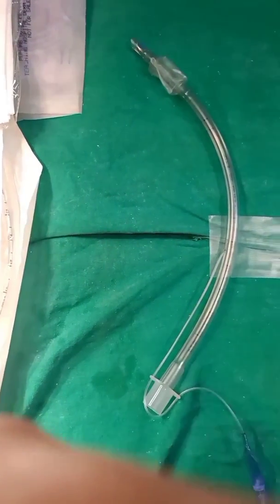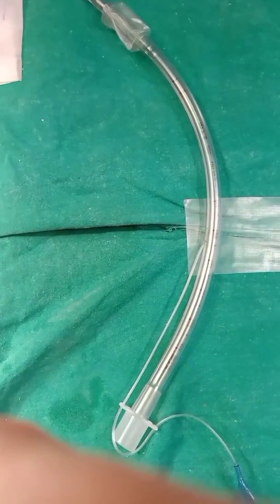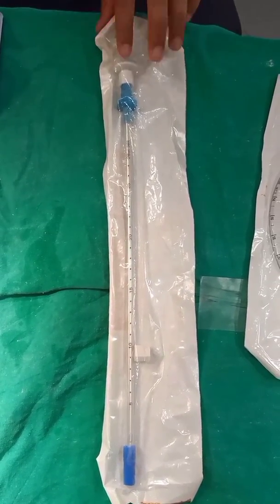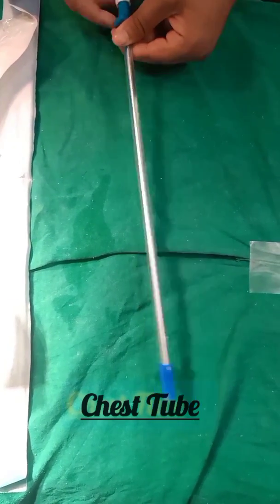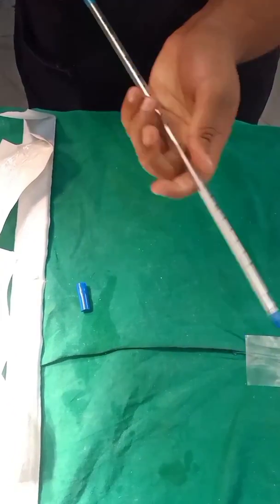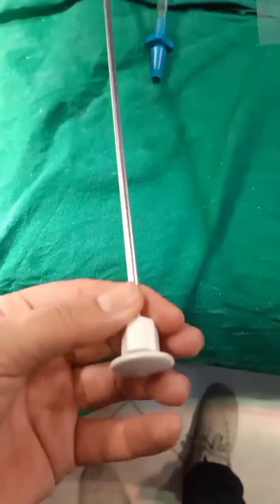It is placed with the help of the laryngoscope. In the close view, you are now seeing the chest tube with a trocar. While opening it, you will see there is a trocar. This is useful as it requires a very small incision compared to the traditional chest tube, which requires a larger incision, though it can be traumatic — everything has its own consequences.